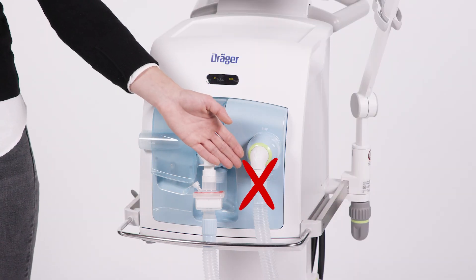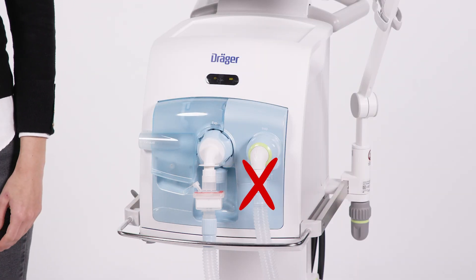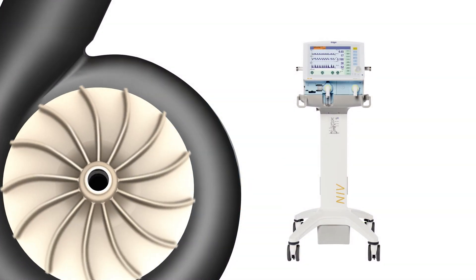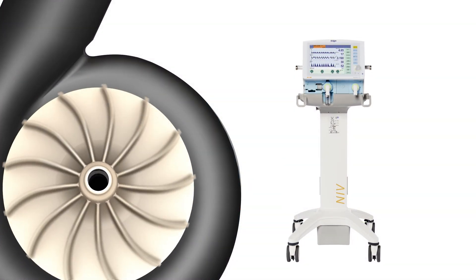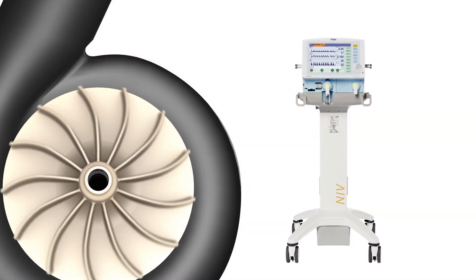It is not necessary to place another filter in front of the inspiratory valve unless the ventilator used is a turbine-driven device that applies ambient air.